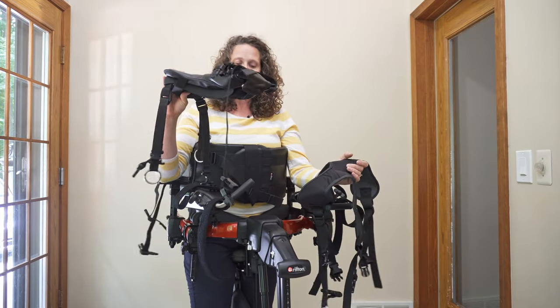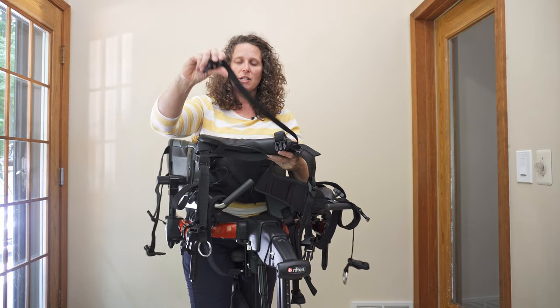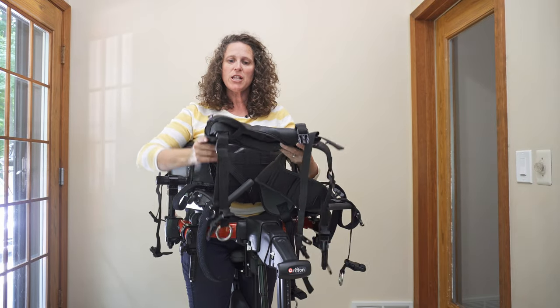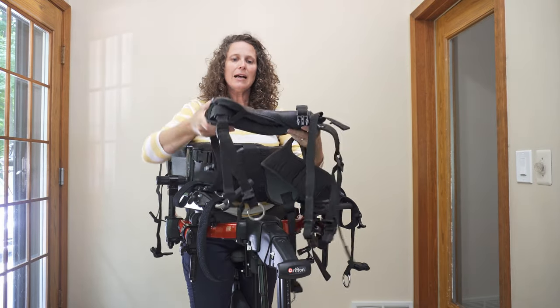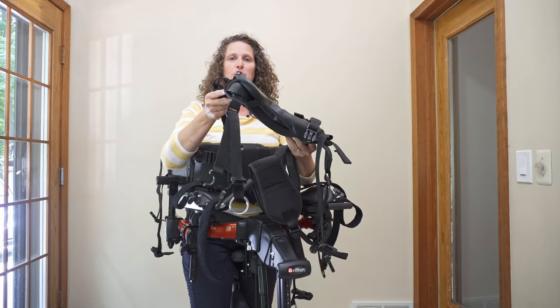What you can do to achieve that position is to actually slide the front of the straps up closer to the arm prompts. You can change the angle by tightening either one, or by tightening or lowering the back straps.